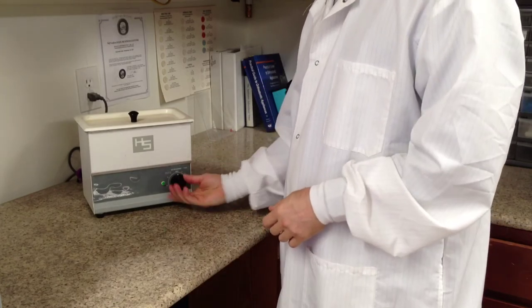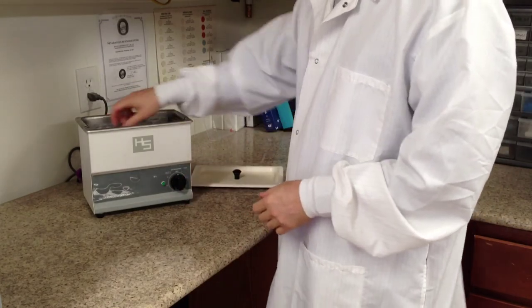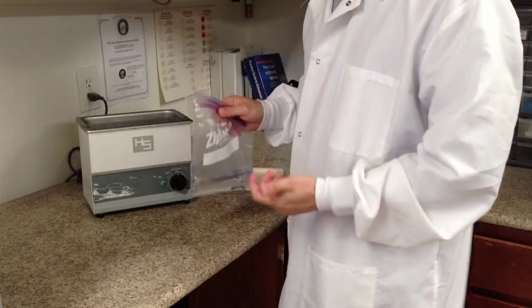When it is done, you are just going to pull it out, rinse it off, and it will be ready.